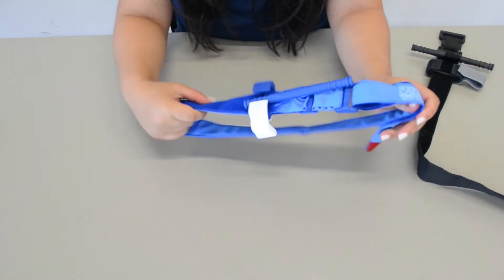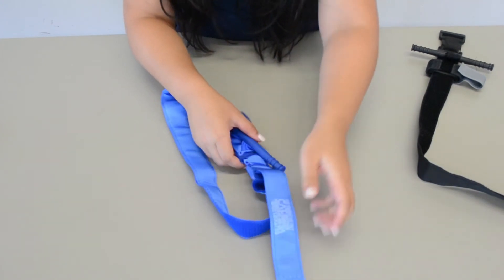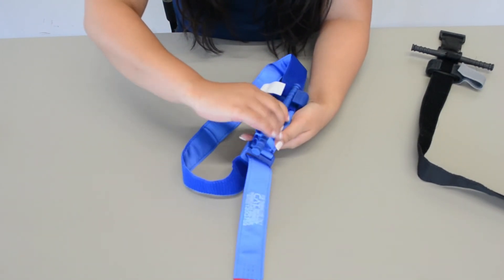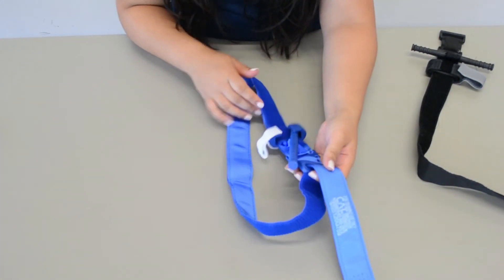So it's going to come like that and be ready for easy slip-on use. These training ones are the exact same thing — you're just going to go ahead and twist, then make sure you're latching it on and write the time when you apply the tourniquet.